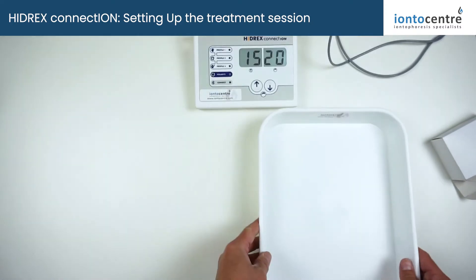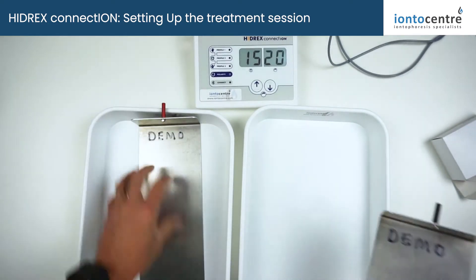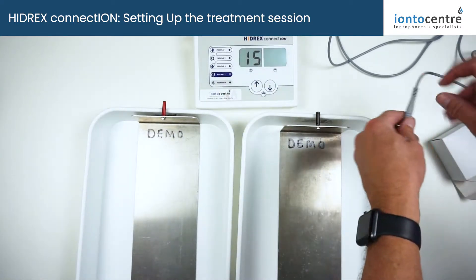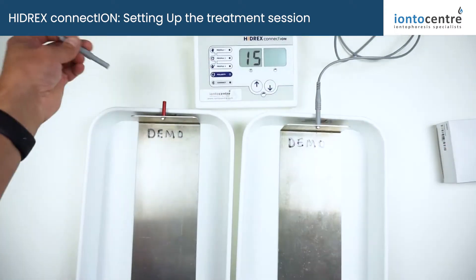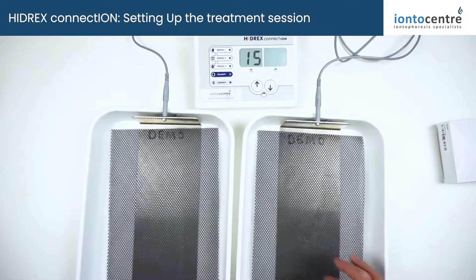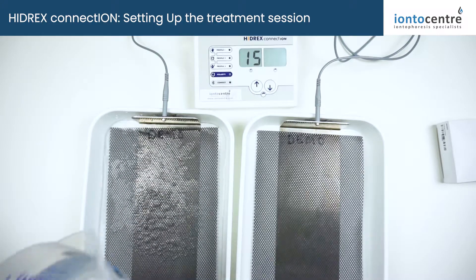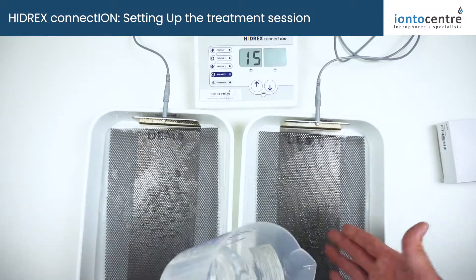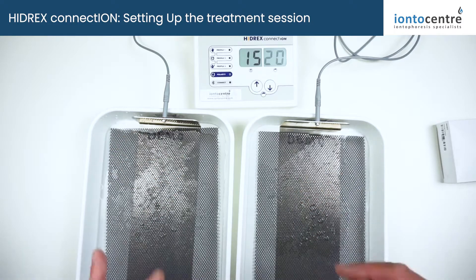I'm going to get the standard treatment trays that are provided. Once you've removed the protective film, you've got your electrodes — these are demo electrodes, which is why they're colour coded. With this machine you have automatic polarity, so your electrodes won't be colour coded. Plug your electrode cables in, then cover the electrodes with your distance grids, and pour 400 to 500ml of warm tap water into each tray. This setup is the same for hands or feet.